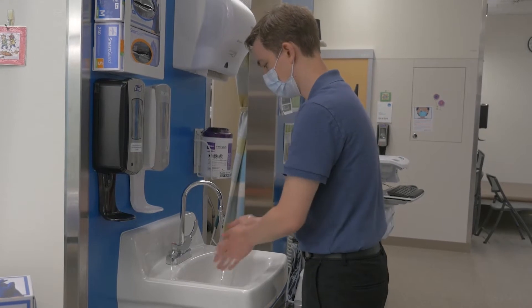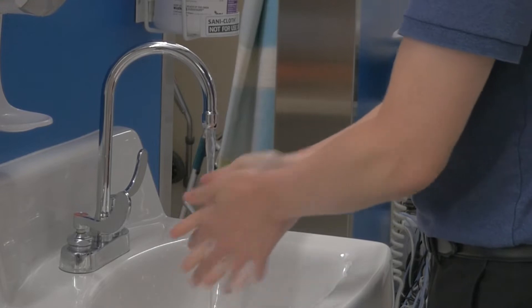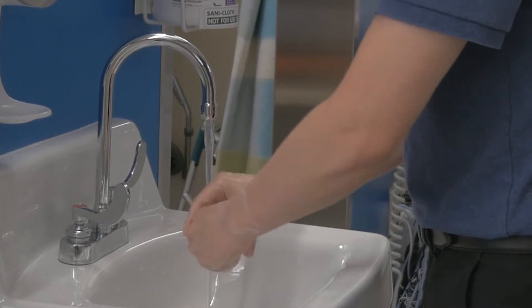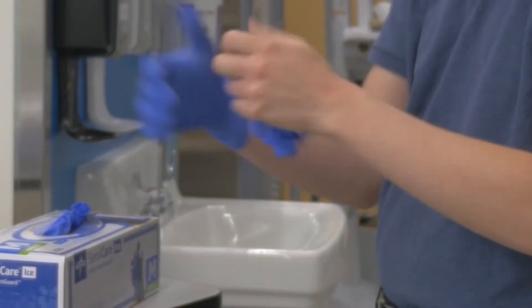The first step is to clean your hands well. Wash your hands with soap thoroughly for 15 seconds in warm water. This is important to keep your child healthy as you are changing their equipment. Next, apply clean appropriately sized gloves.